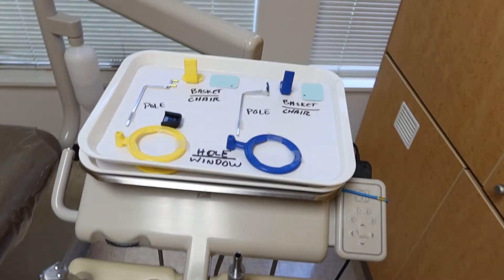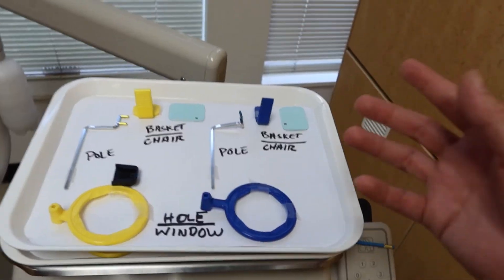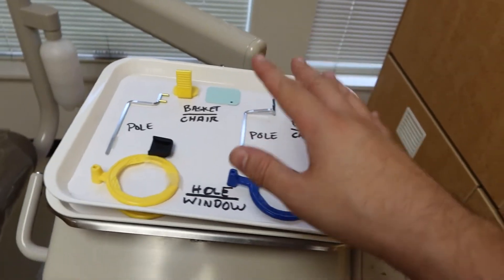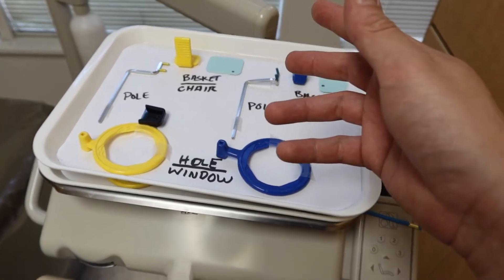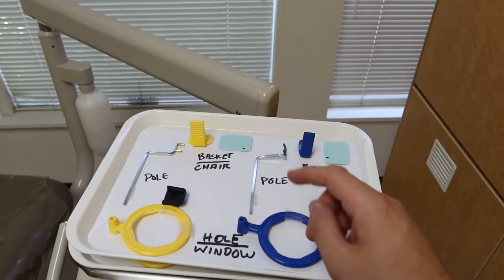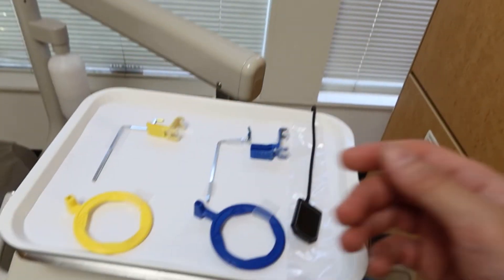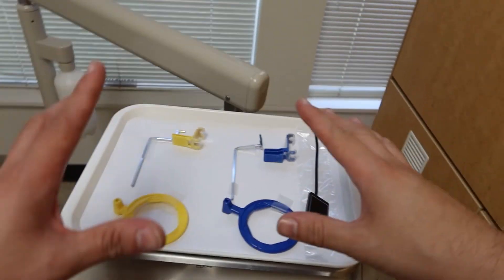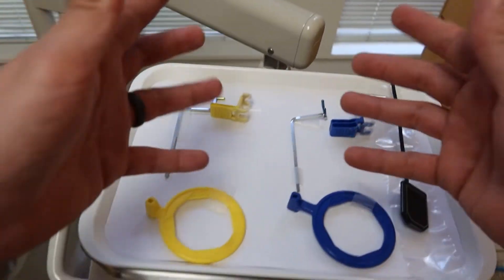Well these are a couple of fine instruments that we have here. It looks like we're gonna be learning our XCP kit — or a ring, or whatever you want to call it. But hold on, I'm noticing something — these are films, that's a little bit old. We're not gonna do that, so let's get this stuff out of here and go to the digital realm, which is a little bit better.